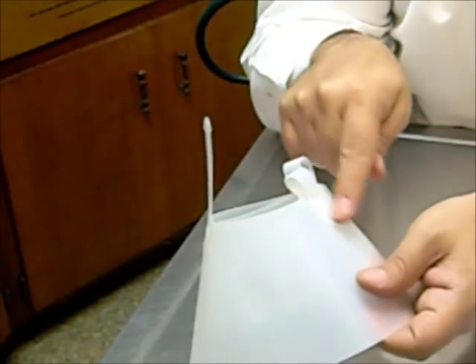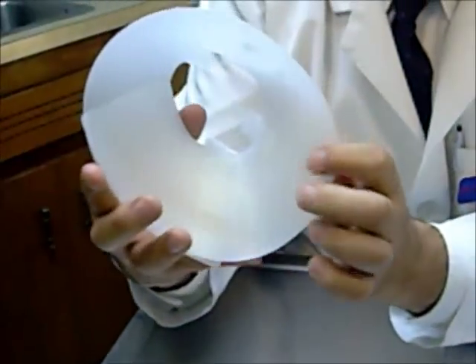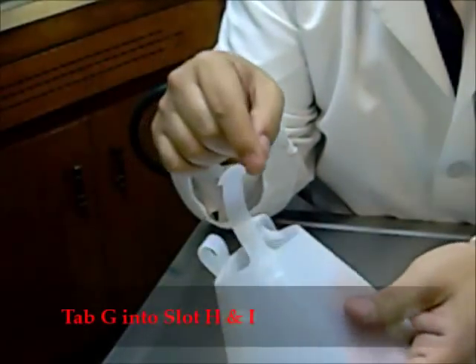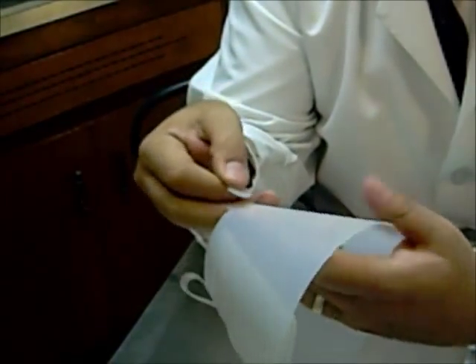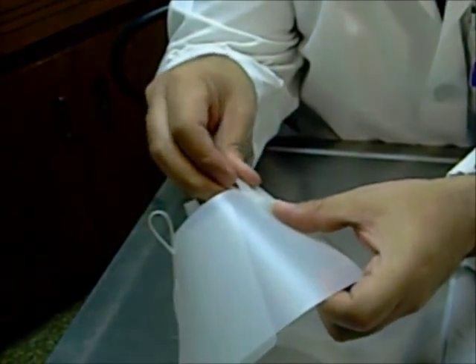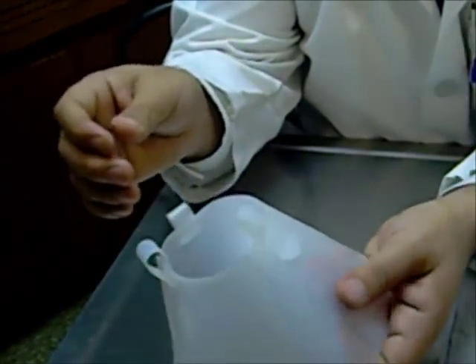You can see all these little plastic prickly parts. If we had started the other way, coming from the inside, these would be rubbing against your pet's neck and face — which would be a little scratchy. So we do the same thing on this side: tab G into slot H, spin that around, then push it up into slot I, hooking with the thumb and pulling that back. And there we go.